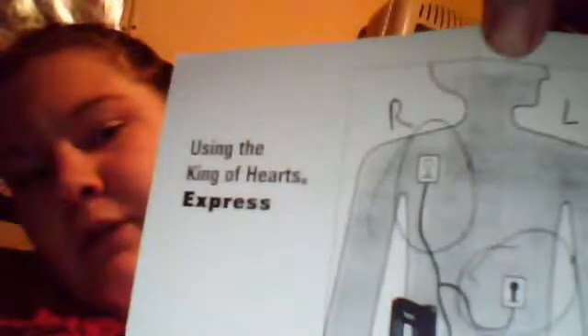So this is the patient diary. It's not like a Holter — with a Holter they give you a diary and you have to write every single little thing that you do every time you move. This one was given to me basically to show me where to place my electrodes. This diagram right here is how the cords look on your body when you're wearing them.